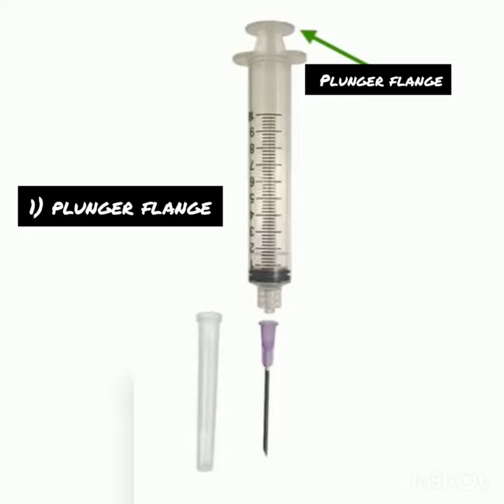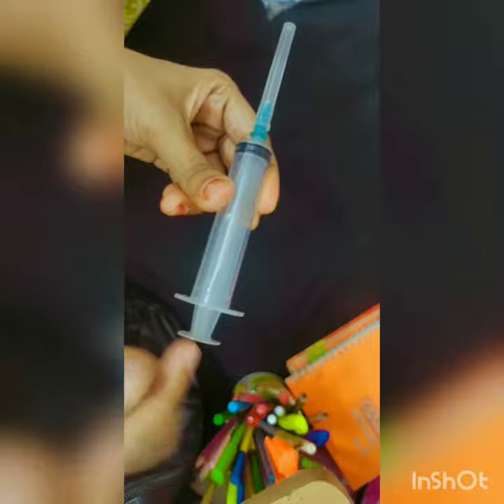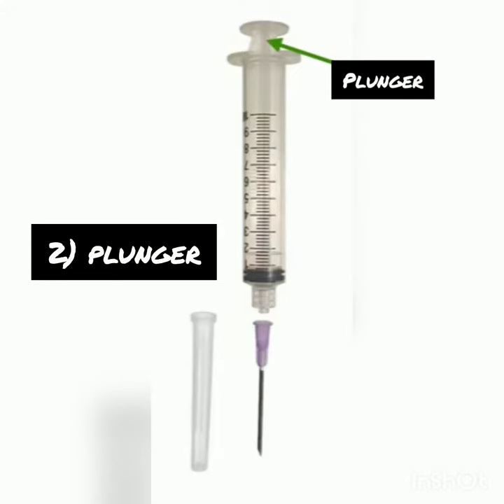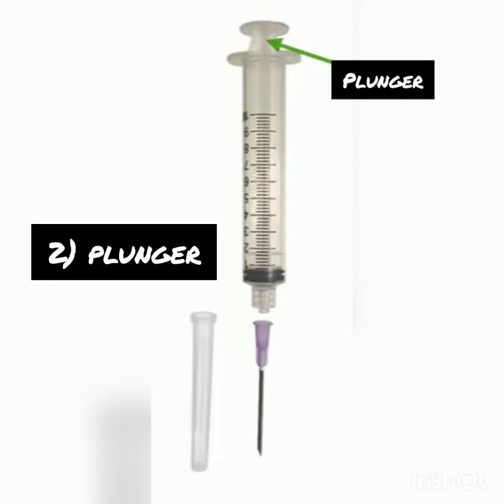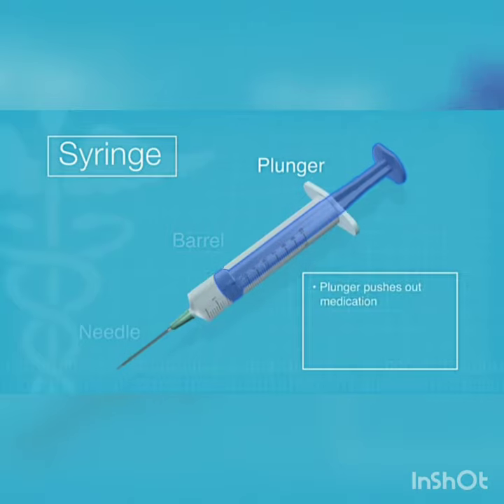Now we will discuss it in detail. Plunger flange: the plunger flange bears the load of whatever is pushing the plunger. Plunger: the plunger pushes the medication out through the needle. The plunger is a piston-type rod with a slightly cone-shaped top that passes inside the barrel of the syringe.